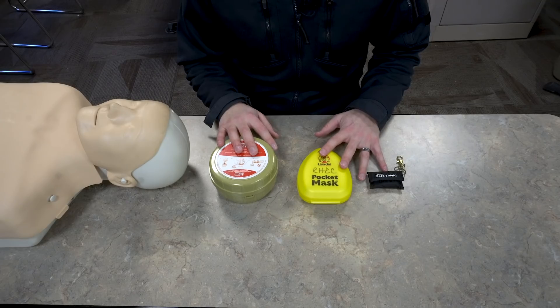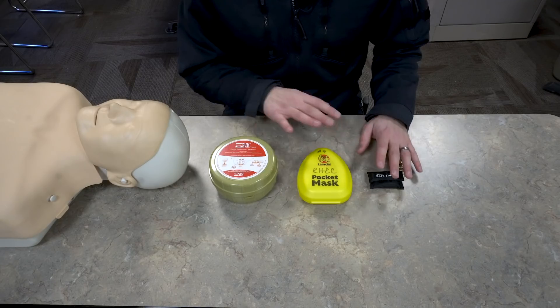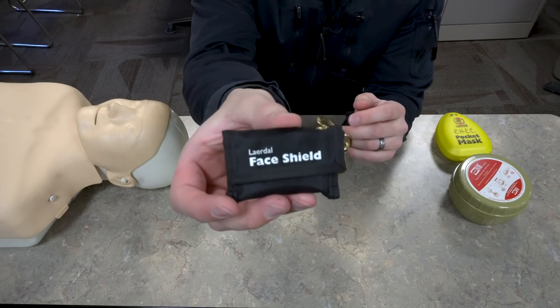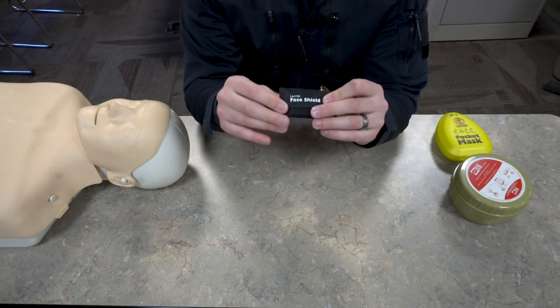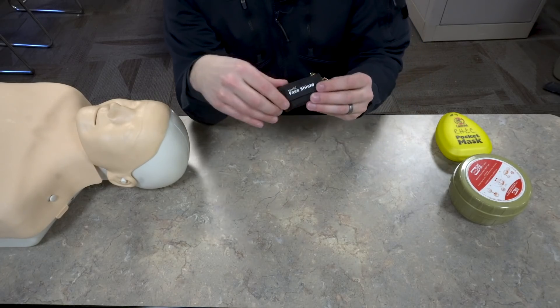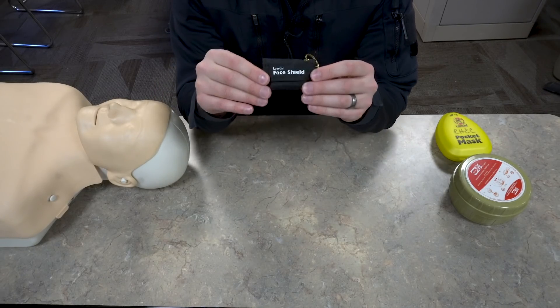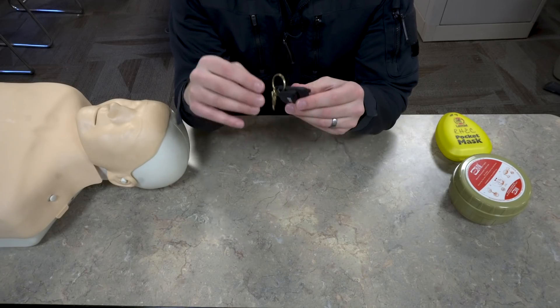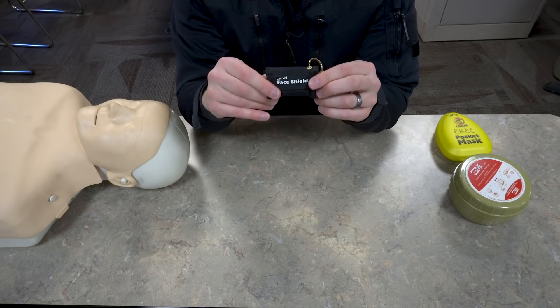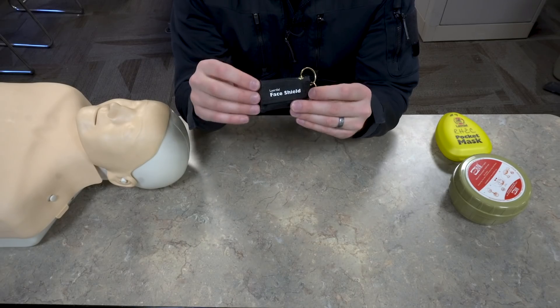Here are three of the tools that are commonly used to provide rescue breaths to a patient. This is a face shield and this is probably the most common thing used by lay people to provide rescue breaths. This is also the device that has the highest risk for infection or the spread of disease to the rescuer, and that's why I really don't use these and don't recommend them a whole lot. Granted, you can see how slim the form factor is — this is really easy to put in a small kit. These are good to have but I think there are better options you'd be better off carrying.